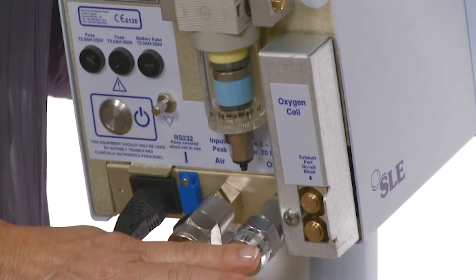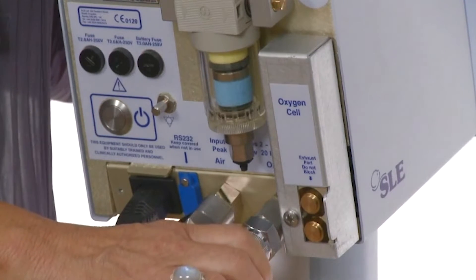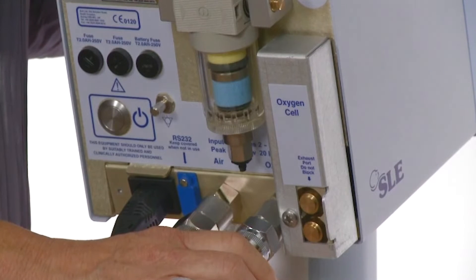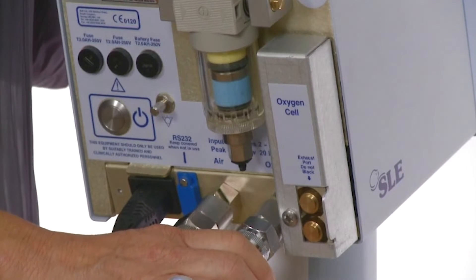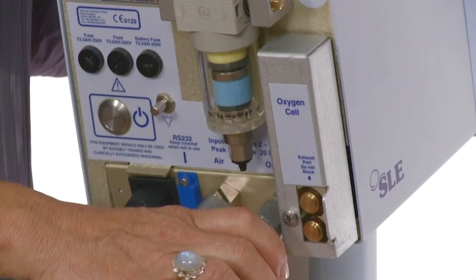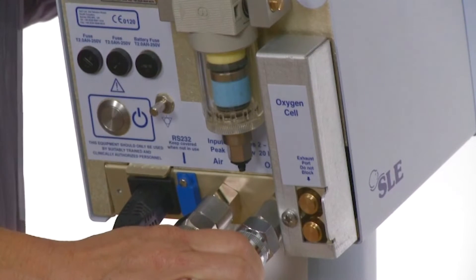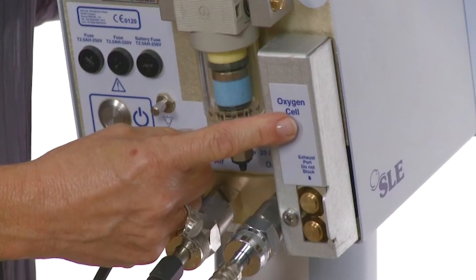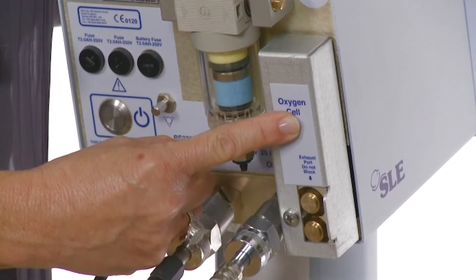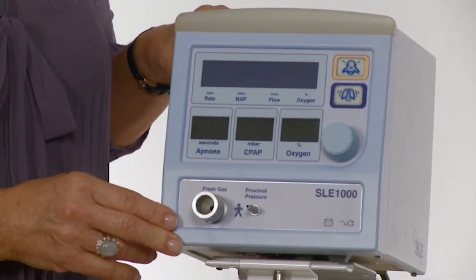The gas inlets on the SLE1000 can be rotated through 90 degrees. On supply they are in the horizontal position, but if there is a need to shelf mount the unit, these inlets can be directed in a downward position. The oxygen cell cover must be removed and the locking screw inside released to be able to move the inlets into a downward position.